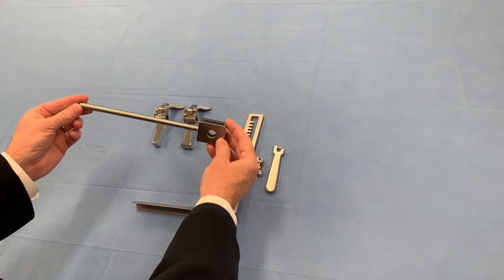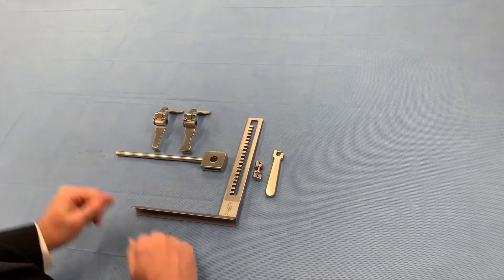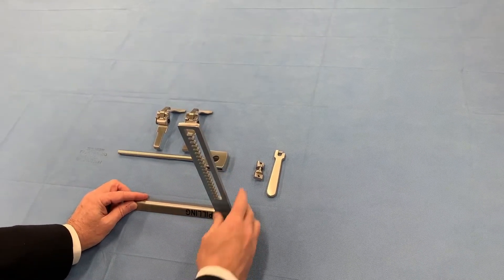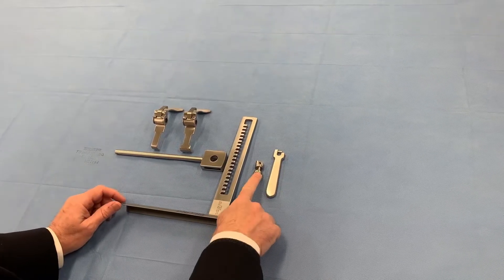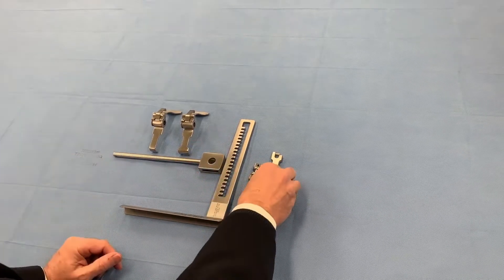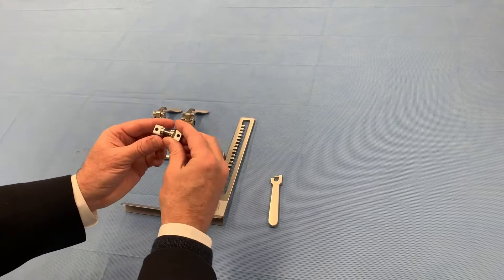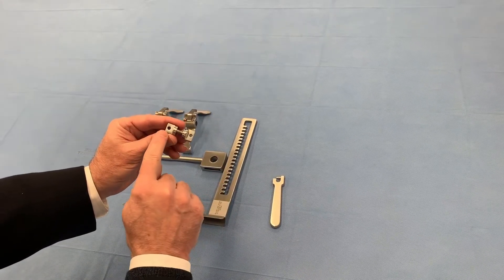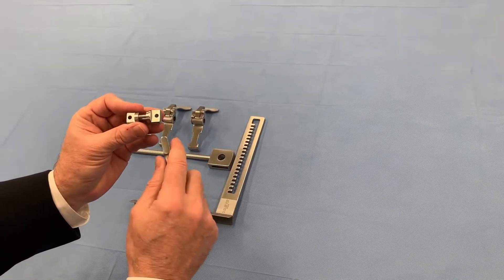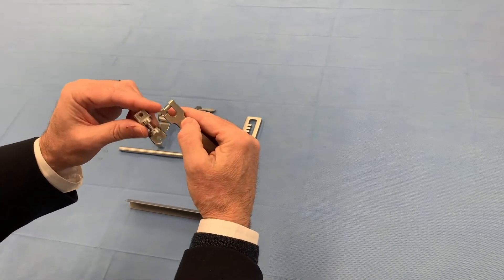This is the blade bar. This is the longitudinal retraction bar with the rack on it. This is the pinion that goes in the horizontal bar into the rack, and this is the handle for the pinion. When you assemble this, one side is larger than the other, so you're going to want to put the handle on the larger side. It also has a wide end and a narrow end where this post is going to go in.